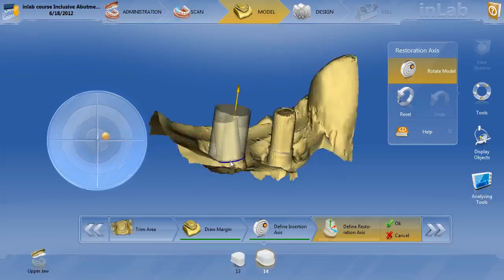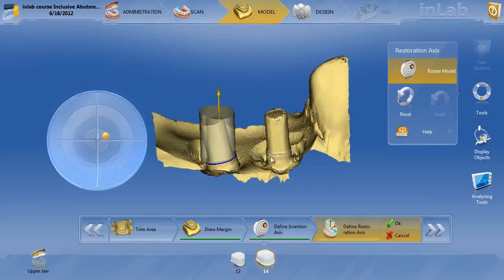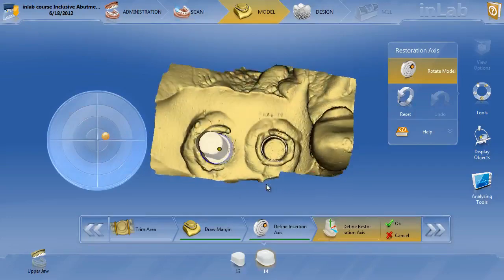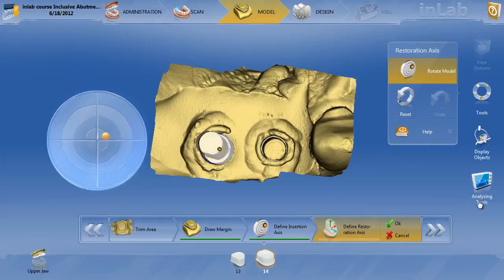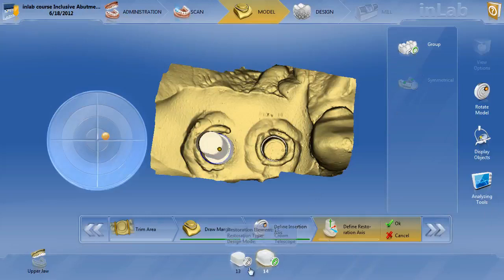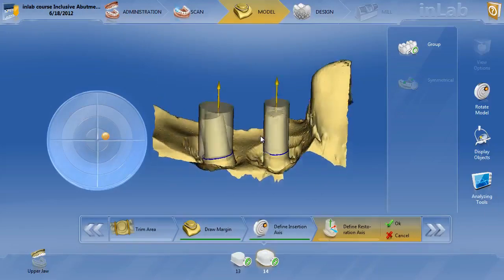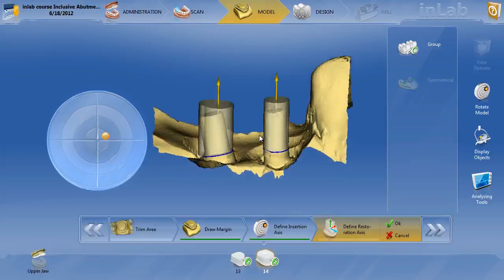Since, like I said before, we're going to try to make a bridge, and these abutments are really actually not parallel at all, we need to find a way to parallel these two telescopes on top of these Glidewell tie bases. So the way that you do that, you can't see that here in the video, the way that I'm recording is cutting it off, but below Analyzing Tool, there's an option called Linking, and you want to go ahead and click Linking. Once you hit the Linking option down here, you want to select Group, and you can see down here, 13 and 14, you have these little handcuffs, so you want to go ahead and click on 13 and handcuff these together. Now what that does is they're automatically parallel.